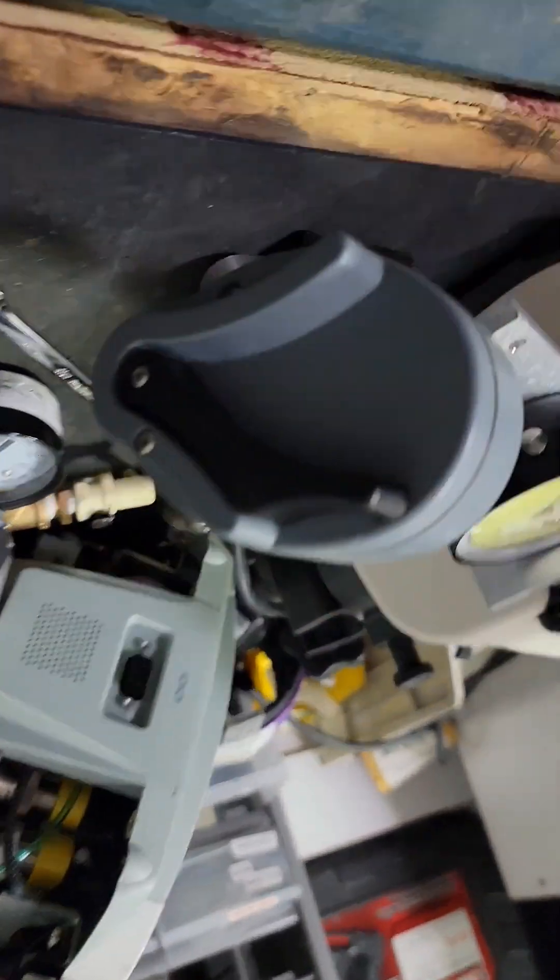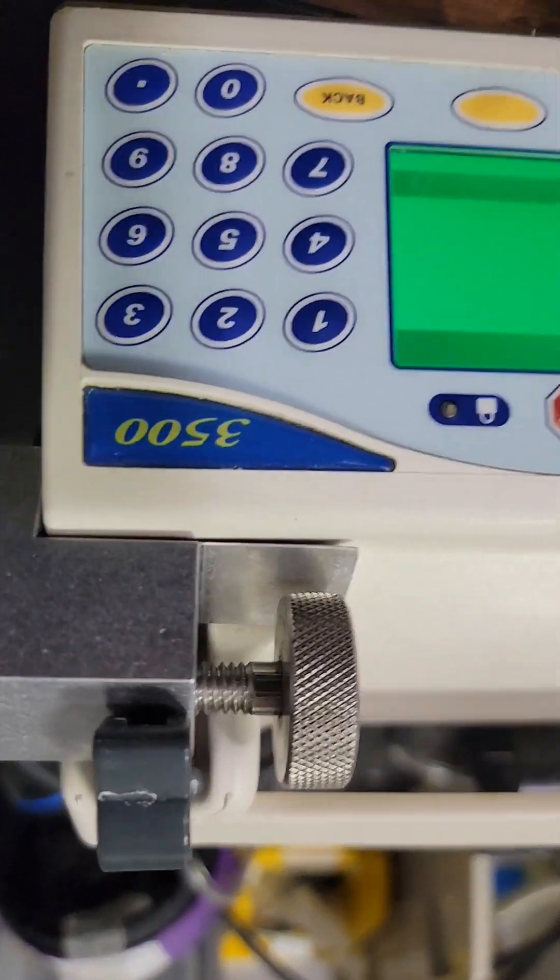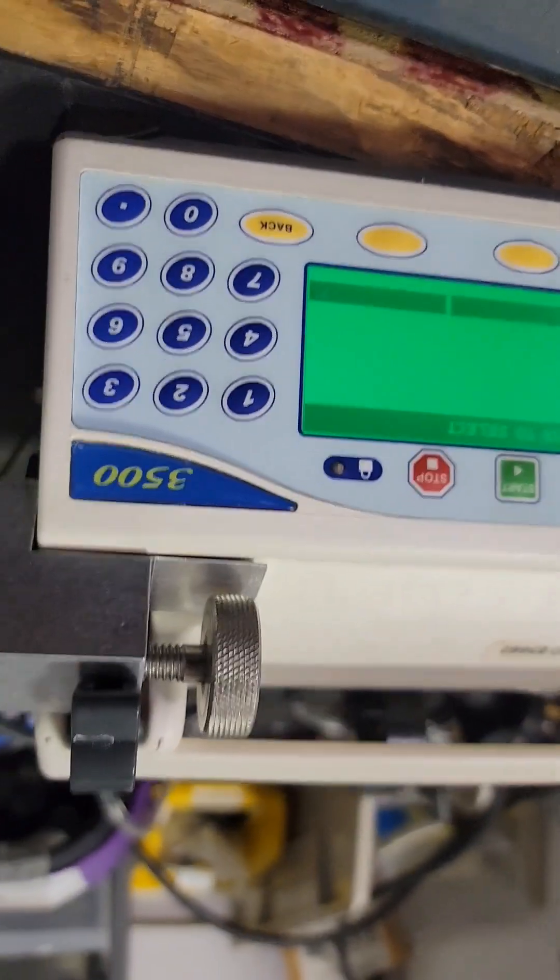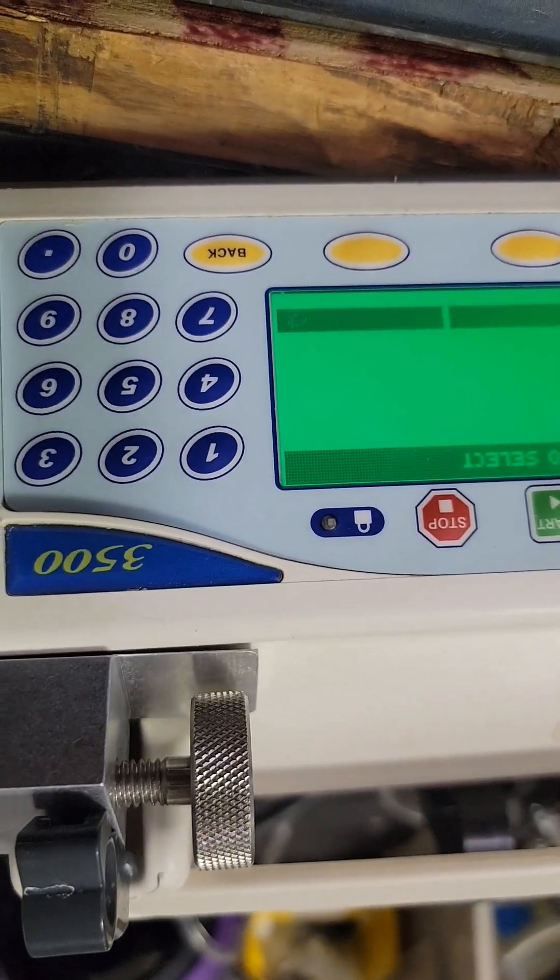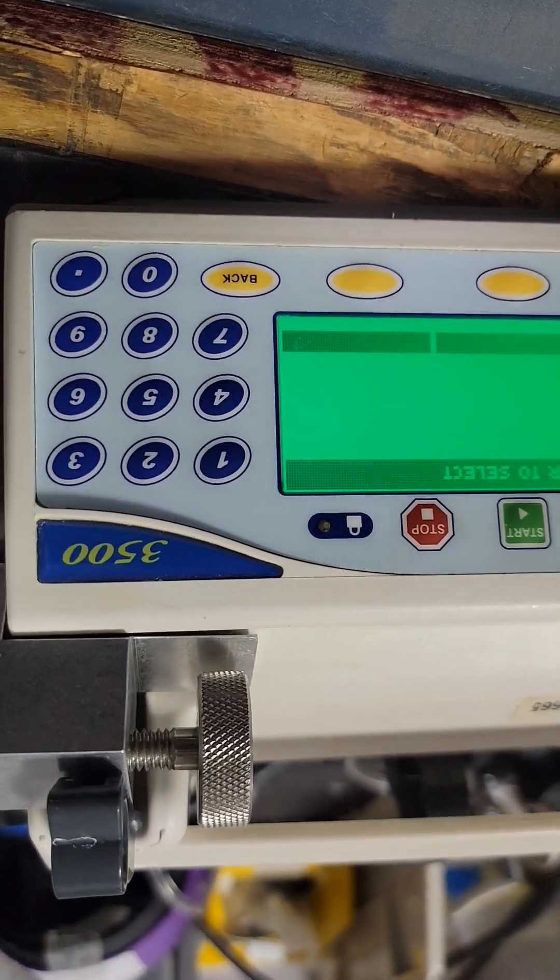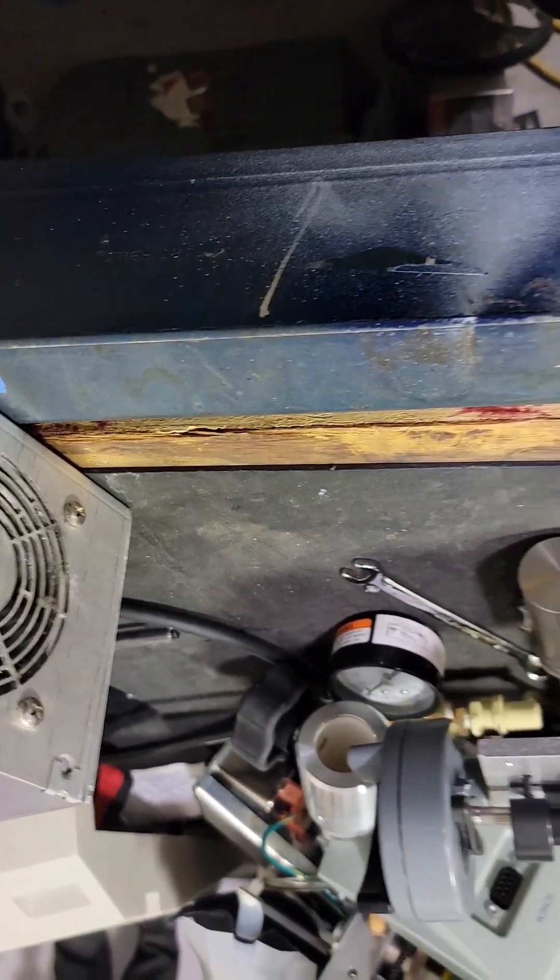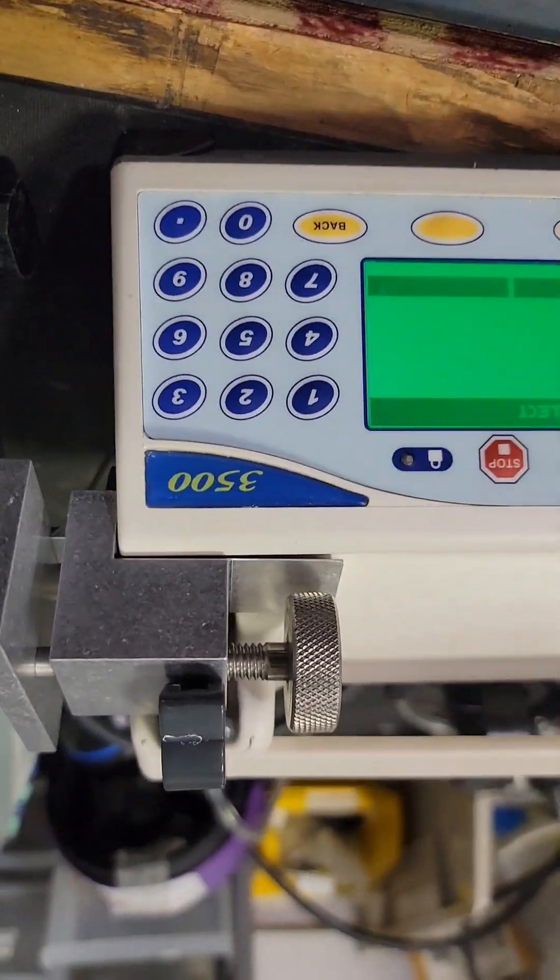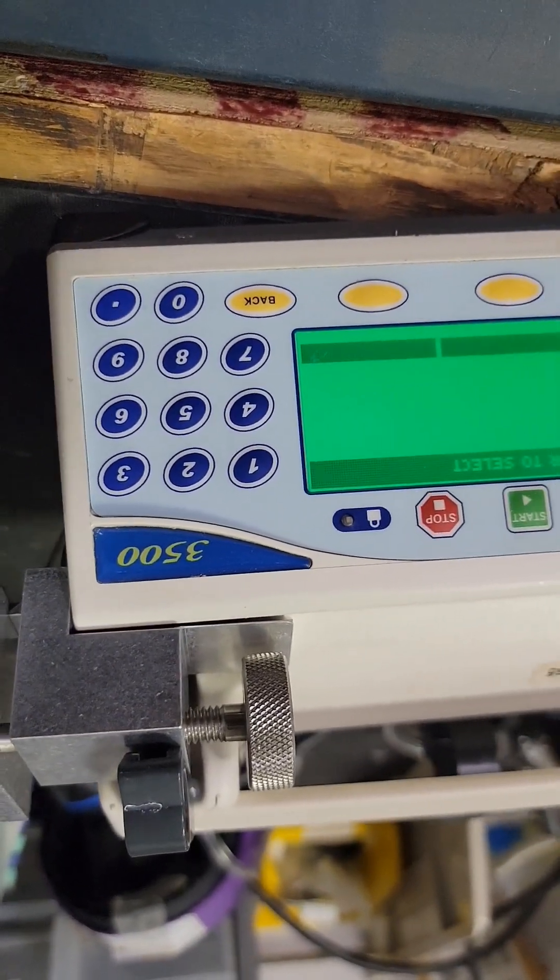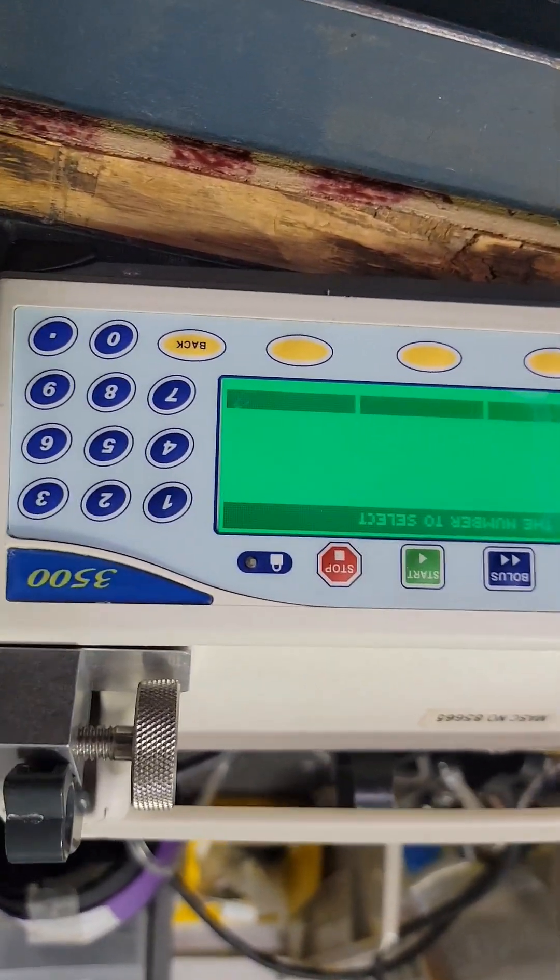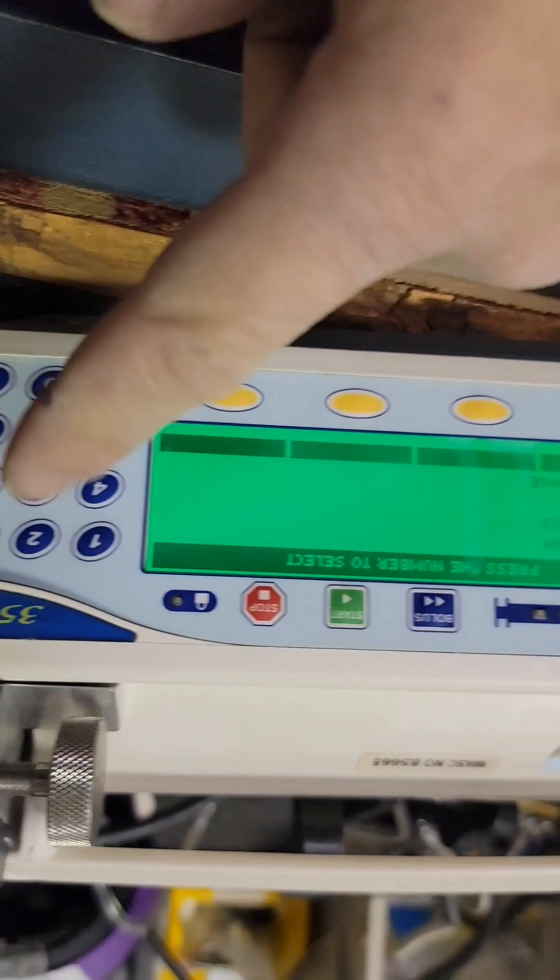The only other thing you can do, if you had an IDA that'd be great, you can put a syringe in here, load 60 milliliters, run through your IDA to check time, rate, and accuracy. If you don't have an IDA you can get a graduated cylinder, and you can load a syringe with 60 cc's of water, hook it up, put in the syringe and just time it and make sure the timer is working correctly and that you're getting the 60 in there.